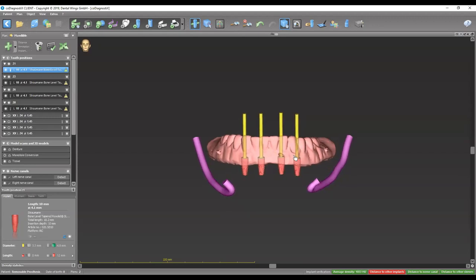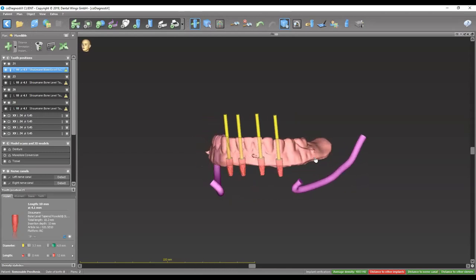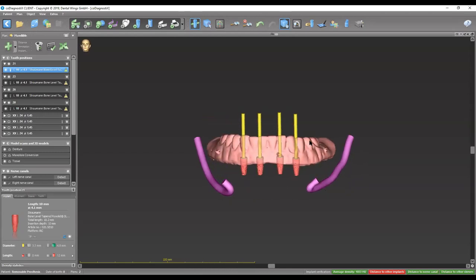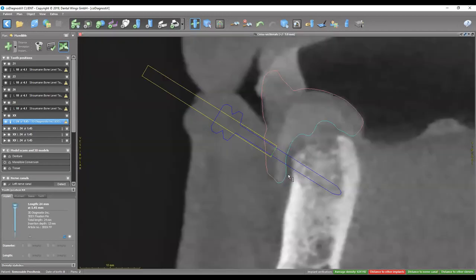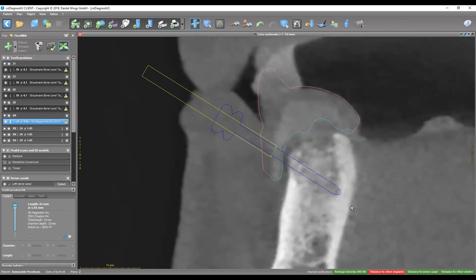Once we're done placing the implants and they look good and parallel, we're going to be placing fixation pins. These are the pins that will hold the guide down. If we just rely on tissue support, the soft tissue gives and has some resilience, so the guide isn't going to be 100% seated. The fixation pins are planned into the bone at a 45-degree angle — placed as deep as possible to engage as much bone as possible. Sometimes we try to have the fixation pin engage a bit of the lingual plate, since it's denser, to make the pin more rigid and stable.